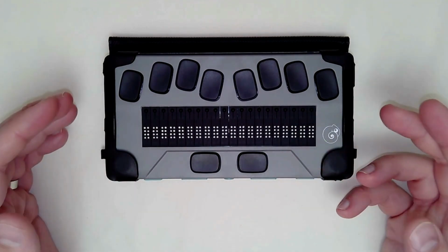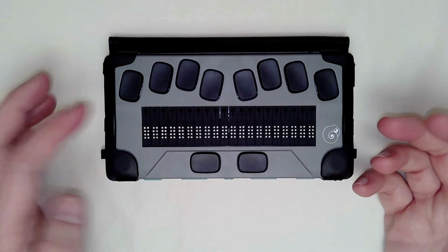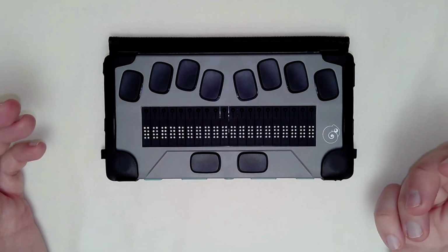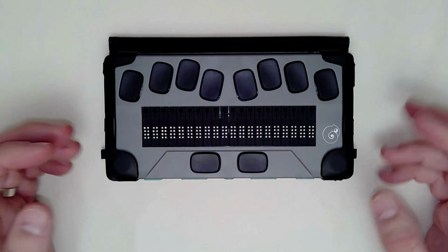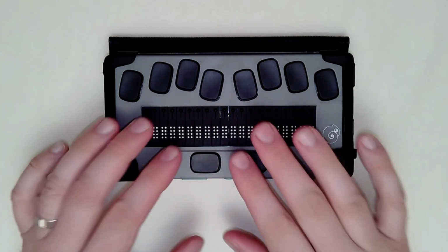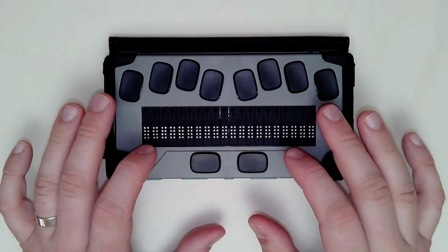When you're writing or editing a document and not in a menu or a list, then space is going to act like a space bar and backspace is going to delete a character just like normal. So that one is somewhat situational, not a hard one to remember, but that's why I teach that one last. But you can use any of those 3 ways of getting around this device. You can use any combination.